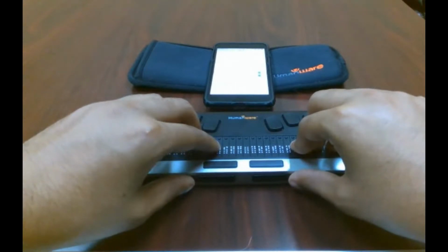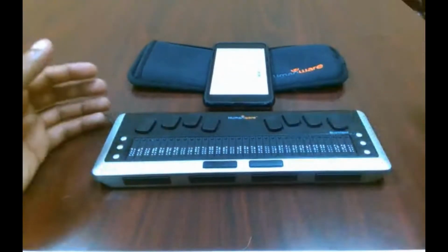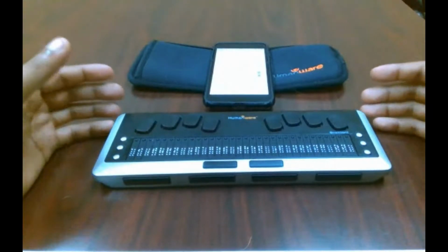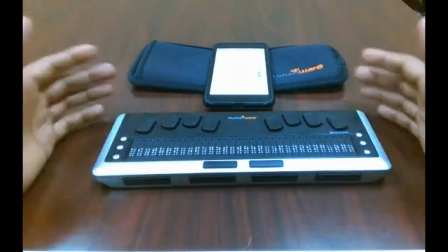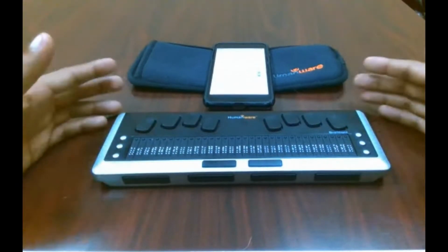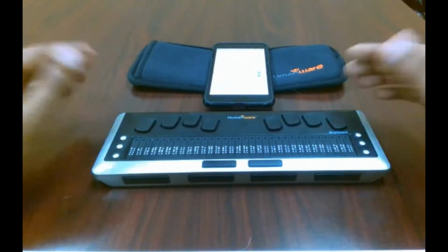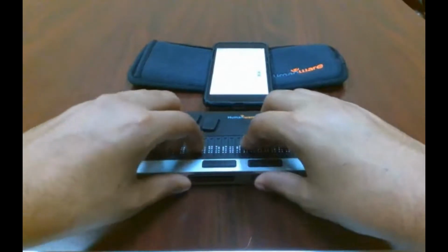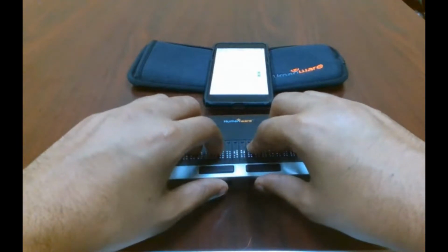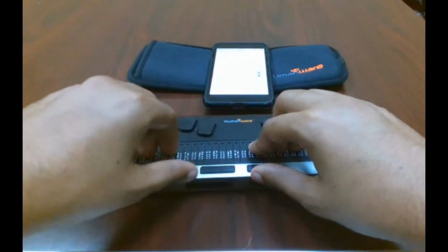Well, of course, while demonstrating, as we in the AT world always know, things do not work correctly the way they're supposed to when in use. But pretty much how those inner two keys will work is, let's say you're reading one selection, but that one selection has several sentences or is one long sentence and it all doesn't fit on your Braille display. You would use your inner thumb keys to navigate within that selection within a small area.